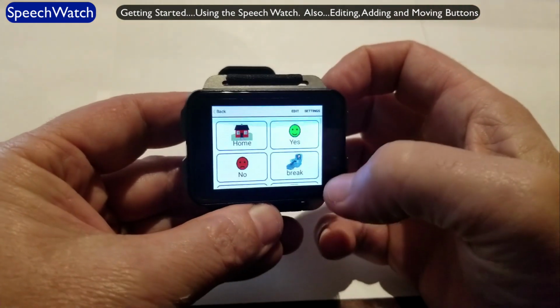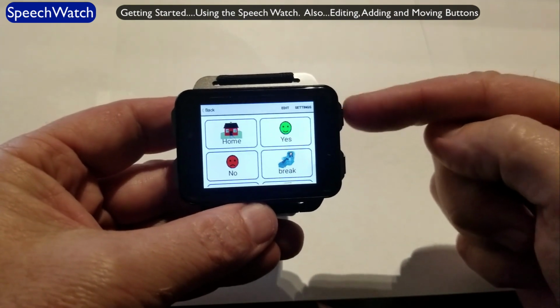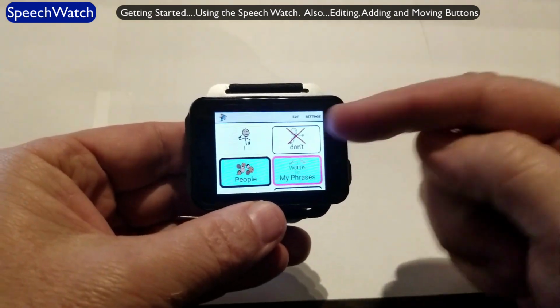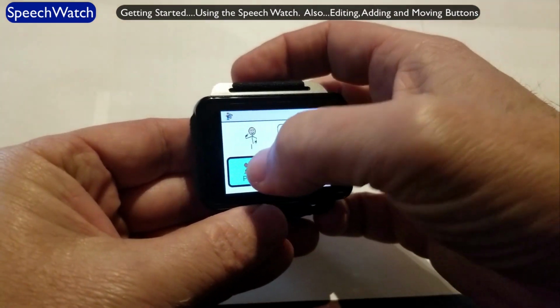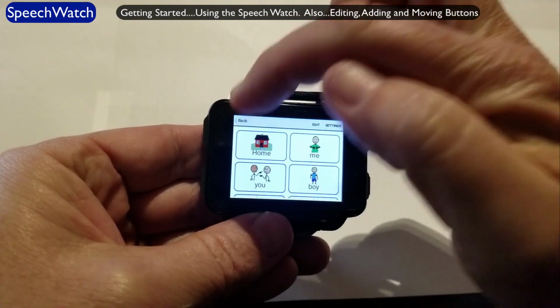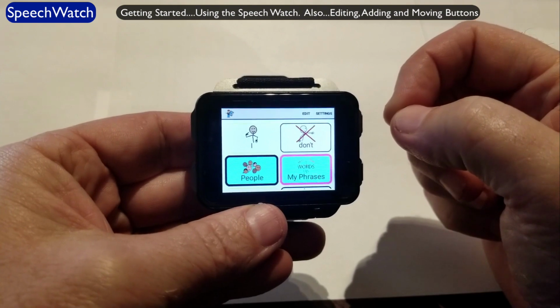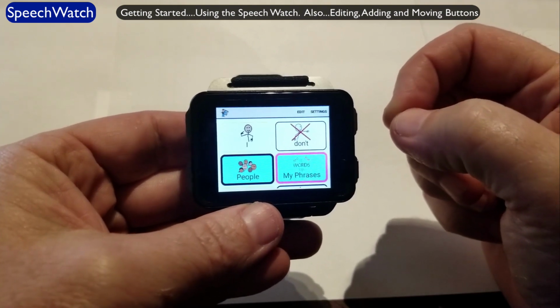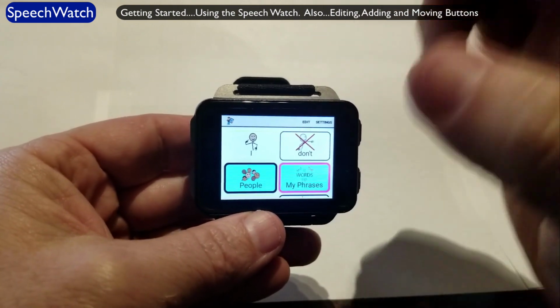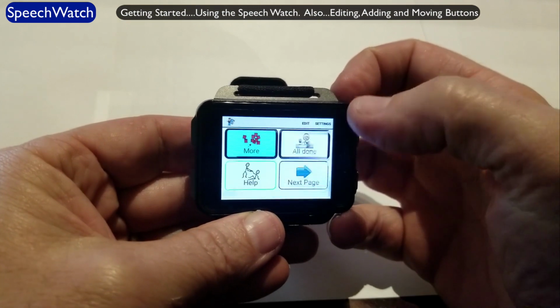And let's go back to the top. Okay, so I will remind you that this button here on the left is a back button. So that will take you back a page. Or if you don't want to use that button for back, there's also the back that's displayed up here in the top left-hand corner. Again, this is the same app that you run on an Android tablet and the same app that we have on the iPad tablets as well. So if you're familiar with that version of it, this is exactly the same. Okay, so I've showed you a little quickly at communicating.